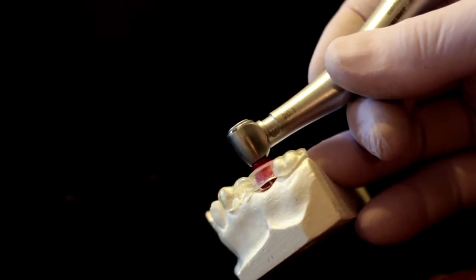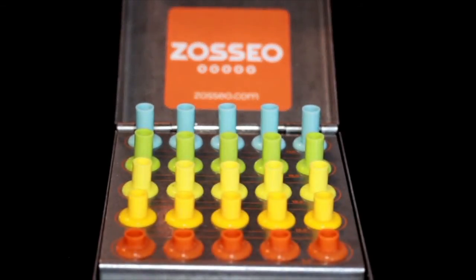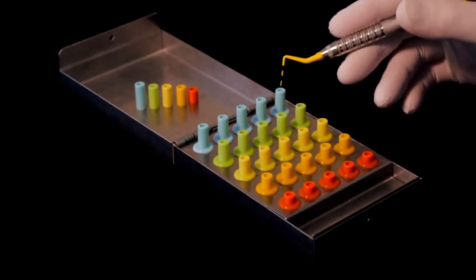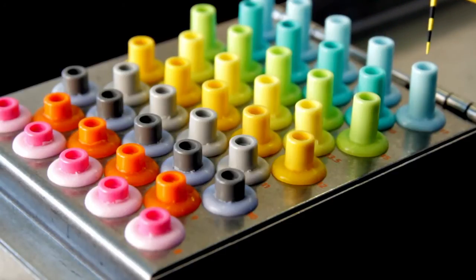Some doctors and guide manufacturers use short implant drill stops above the guide as well. The most common orders are custom assembly kits of either 9 or 5 lengths. One can order them individually as well as a kit. Custom kits can be arranged at no additional cost.